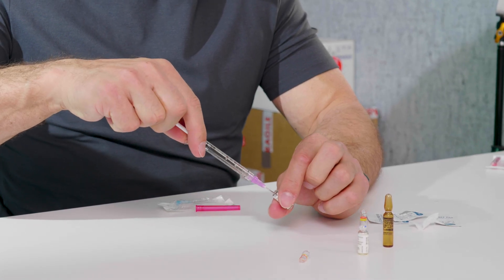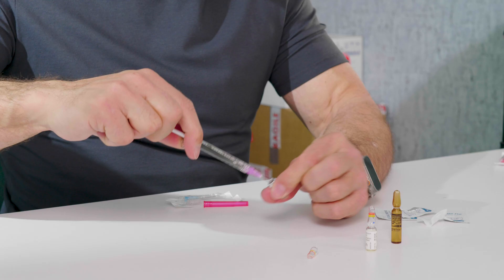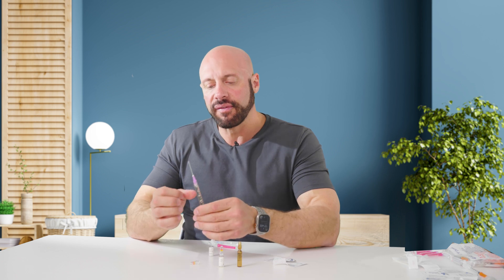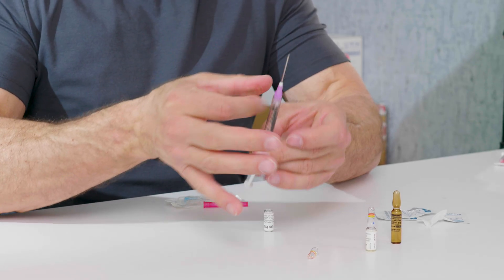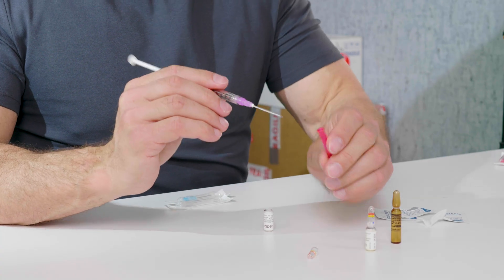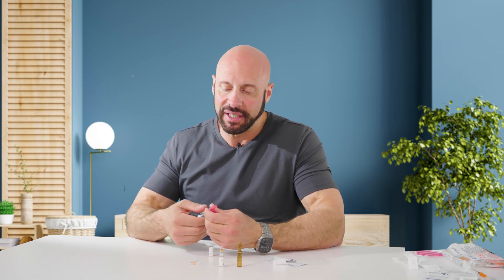One thing to note with some BD 1ml syringes — there is no stopper. That means if you keep pulling out, you'll pull the plunger all the way out of the body of the syringe — you don't want to do that. Now I've got lots of bubbles and those are annoying. If you hold your finger so the plunger doesn't come out and then just flick, you'll see that most of those bubbles are merging together. Once both bubbles have merged, you can recap it. There's really no more room left, so you can't pull back any further without risking the plunger coming out.